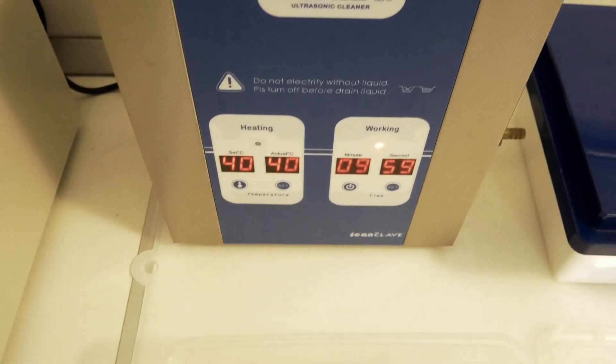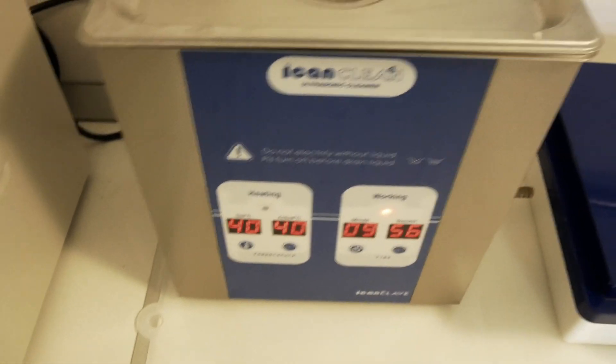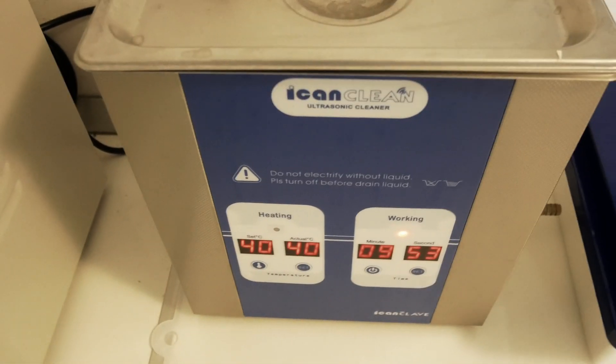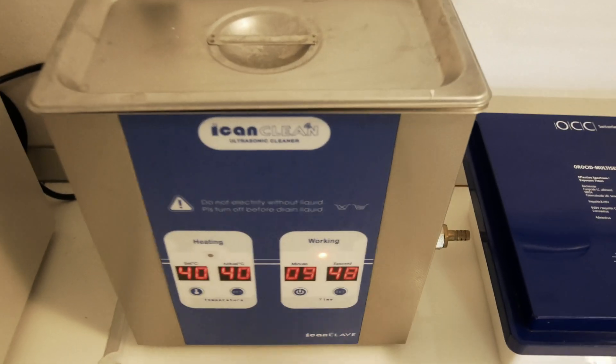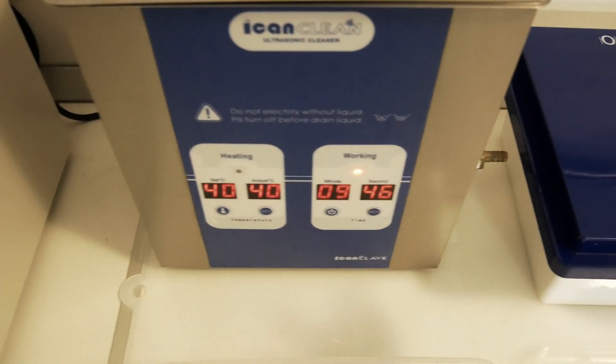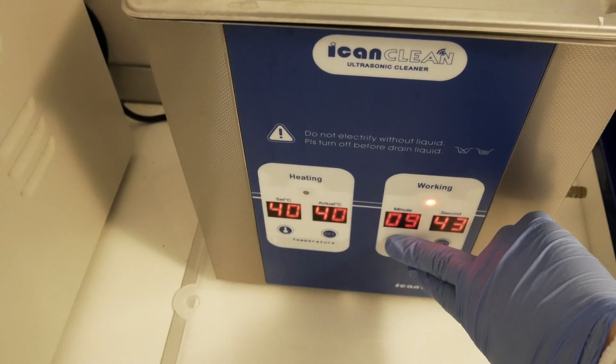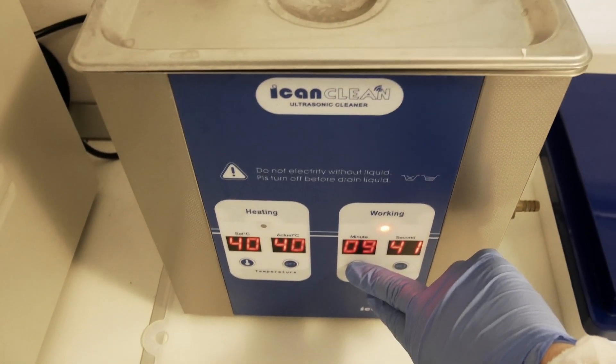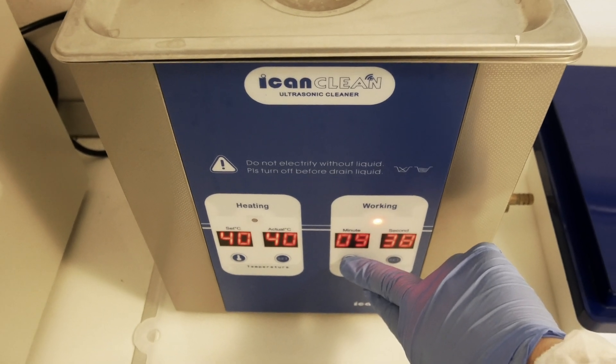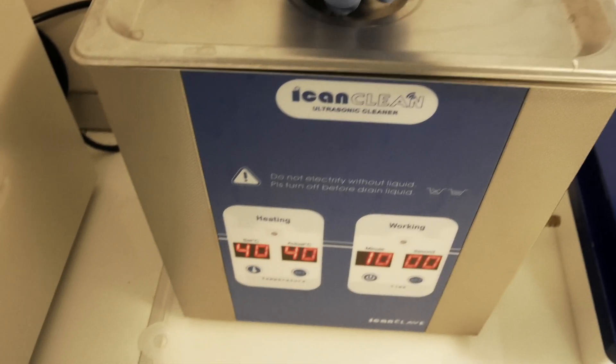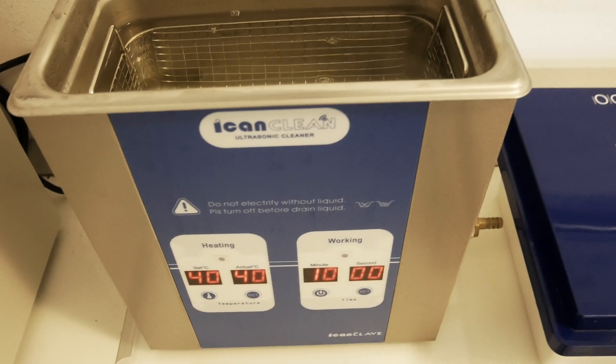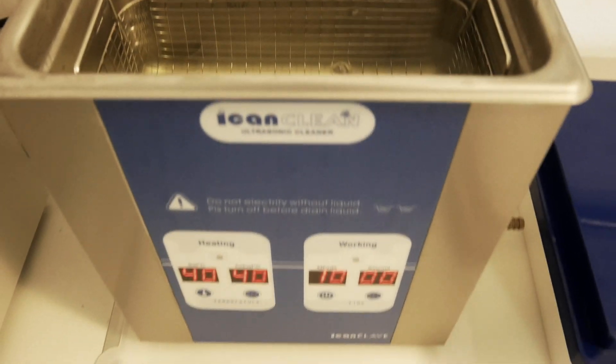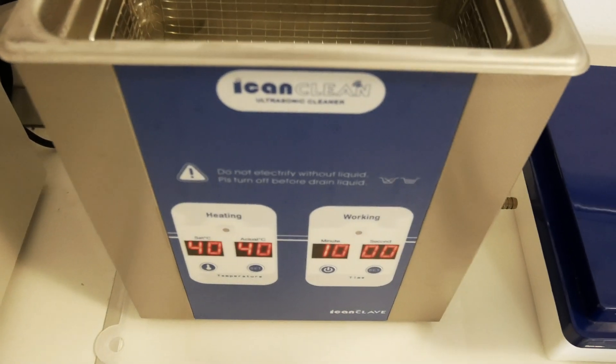Start the machine and let it run. For the video's purpose, I'm not going to let it run as these instruments are already clean and sterile. I'm doing this for demo purposes. After the ultrasonic cleaner finishes the cycle, you'll need to remove the instruments from the ultrasonic cleaner and rinse them with cold water.